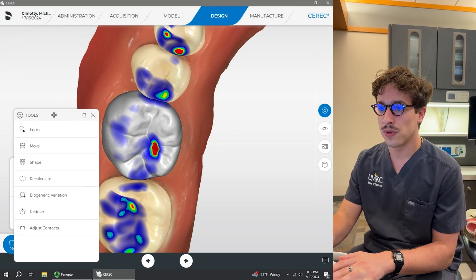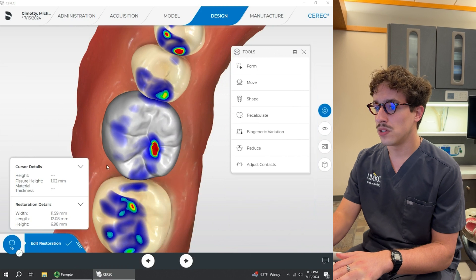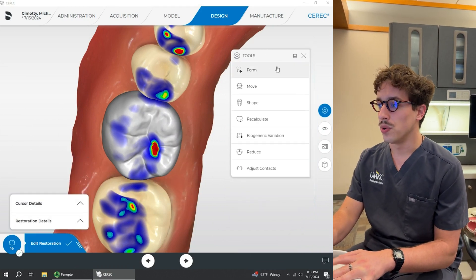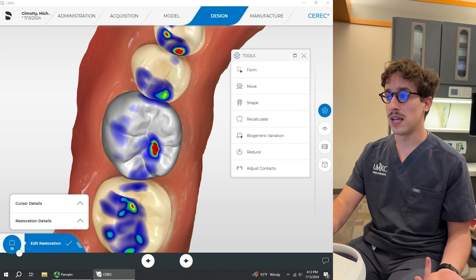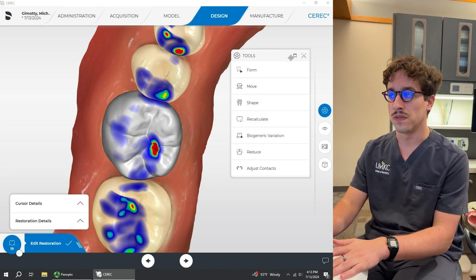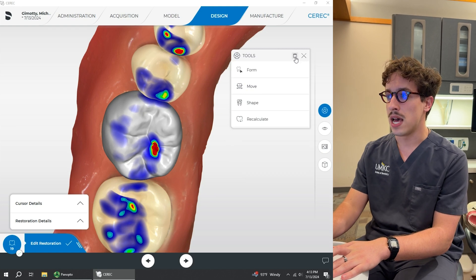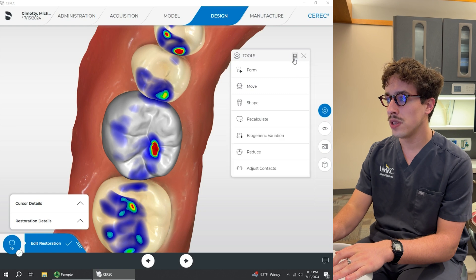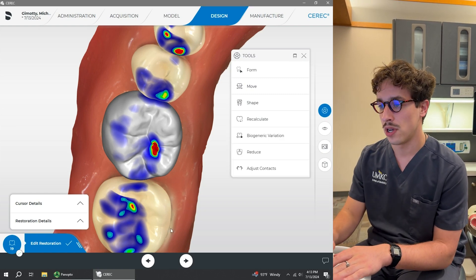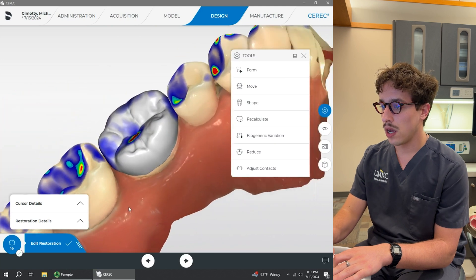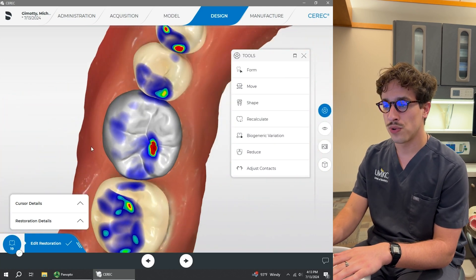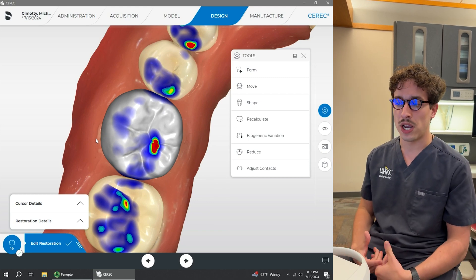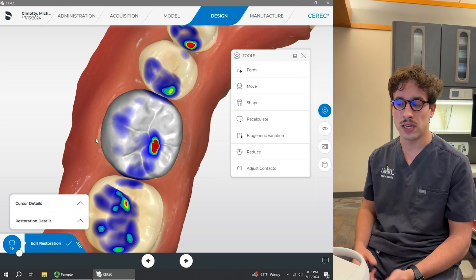Let's get out of display objects. I'm going to minimize all of this on the left side so we don't have the tools. One of the things you'll see sometimes when you get to the design phase is that there's not all of these options available for the tools — that just means this has not been selected up here in the corner. So always make sure it's selected to the one that has all of the options. Honestly, this initial design looks pretty solid. It's more of an ideal scenario here on a typodon, but for an actual patient, everyone's occlusion varies and everyone's teeth and anatomy vary.